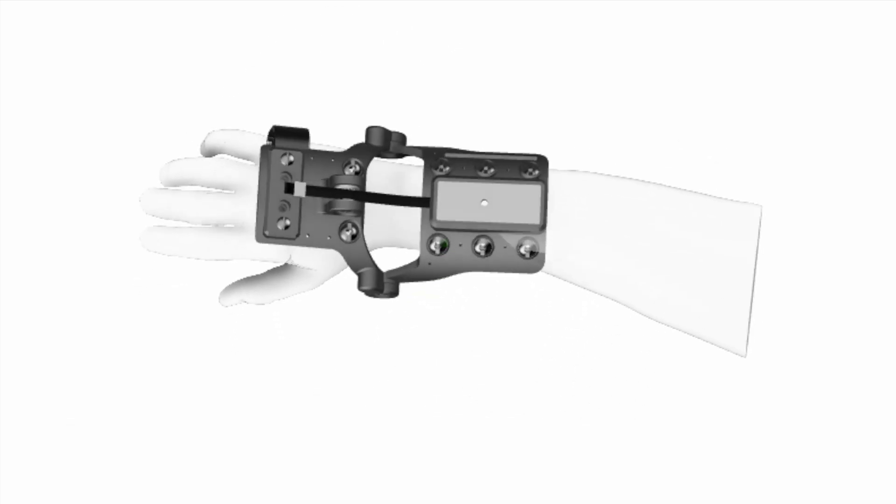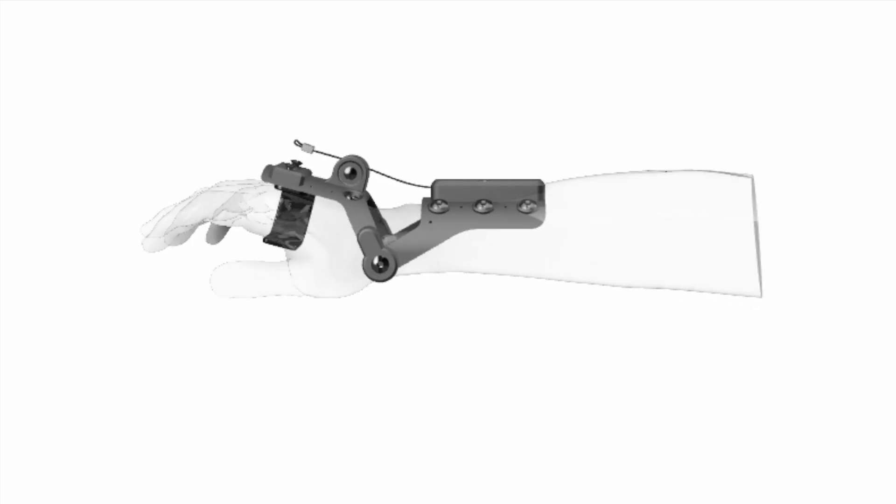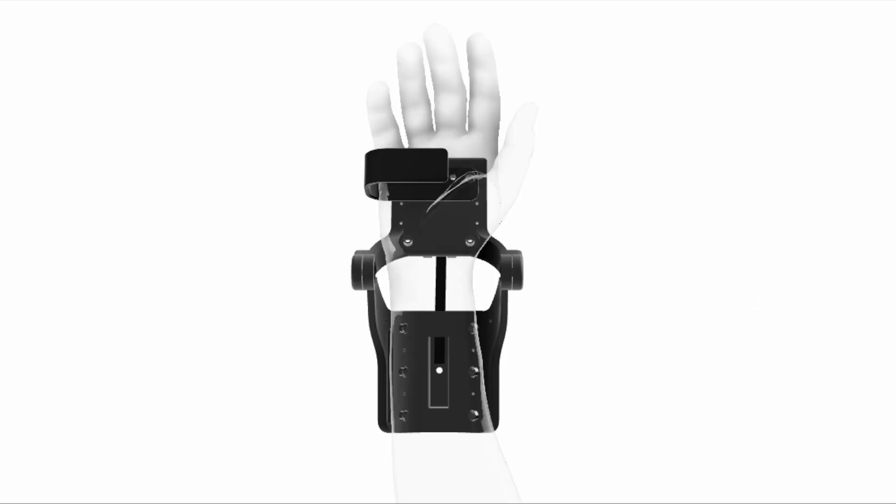First is the open palm design. This allows users' fingers to move freely, supported by a handle and a fabric-based sleeve. This adaptability accommodates various hand shapes without the need for a customized socket.